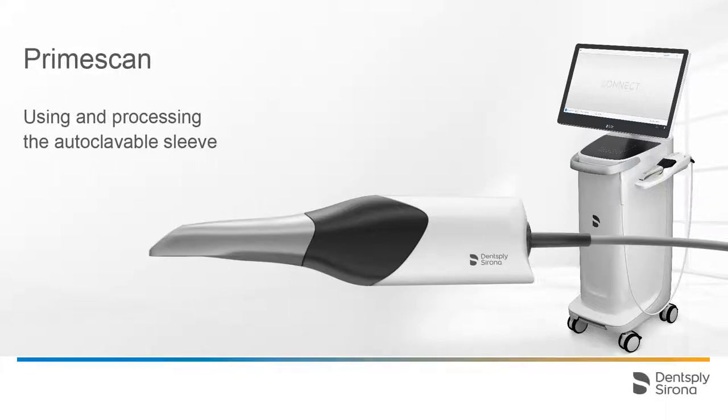Welcome to this video tutorial on the topic of PrimeScan and the new autoclavable sleeve. This video summarizes the steps of using and processing the autoclavable type sleeve.